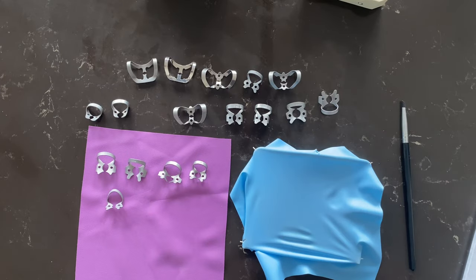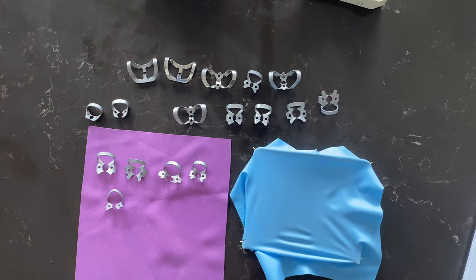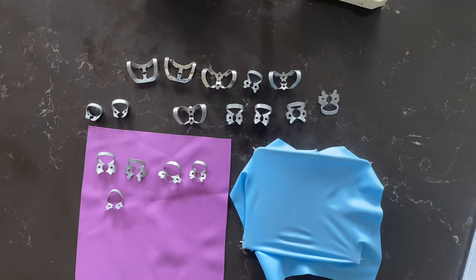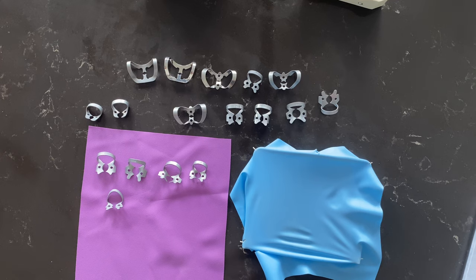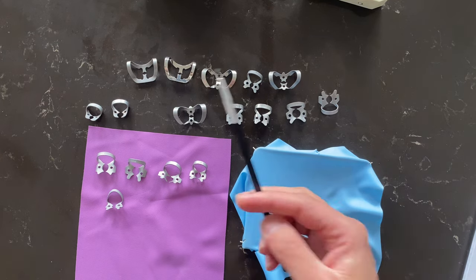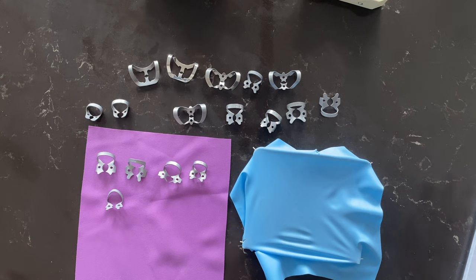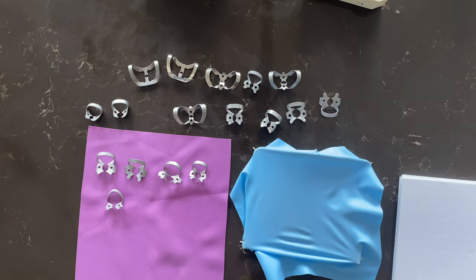Hi everyone, and welcome to the rubber dam class today. A lot of confusions — whenever you get confused, focus on the three ADC laws that I created. Basics: you're not here to impress anyone, just focus on passing the exam. Whenever we see all these clamps and get confused, we won't be using all of them. I want you to focus just on five clamps, and that is it.